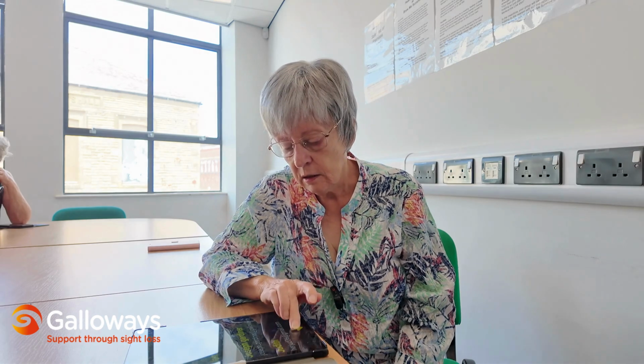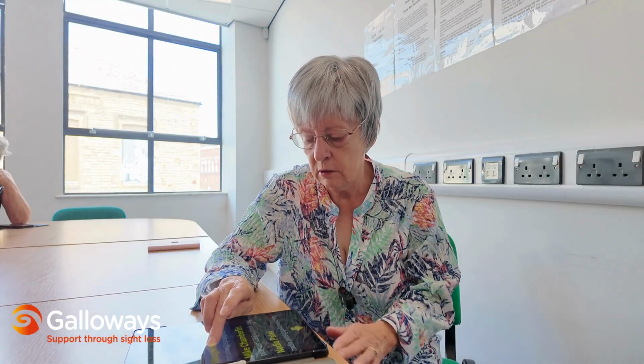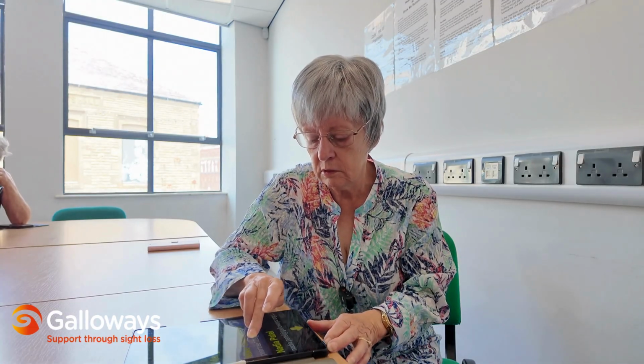So I lift my finger again, and that gets me to the third page, which then is type address or address book. I want to find Nadia. So I've now got alphabetical list, and I can do the same thing going down, except I can also do it a bit more quickly like that. Page 3 of 6. Select contact. I think I might be round near now. Margaret, Melvin, Mike Chamberlain, Petri, Nadia Patel, Nadia.